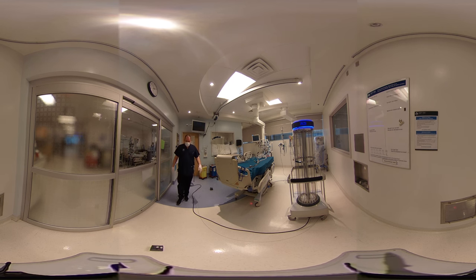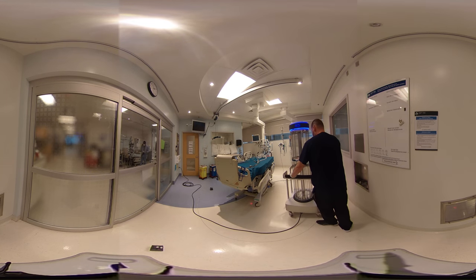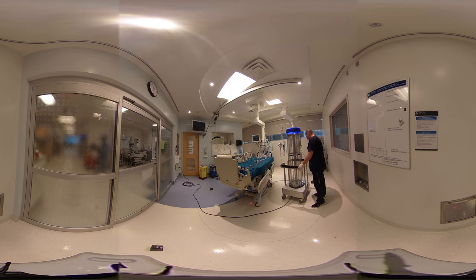Sensor number three has reached its target ratio of 46,000, meaning that the sensor has been bombarded 46,000 times in three minutes. So now we're moving into the last sensor.